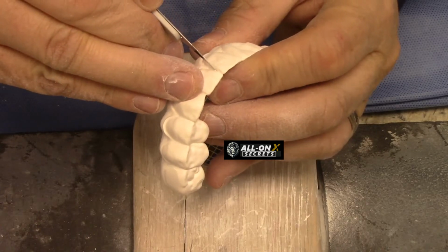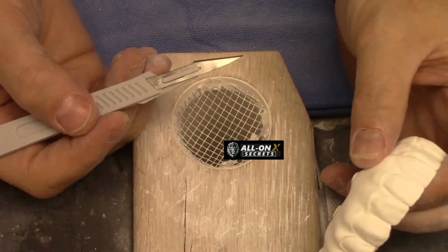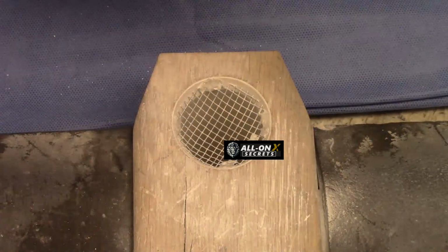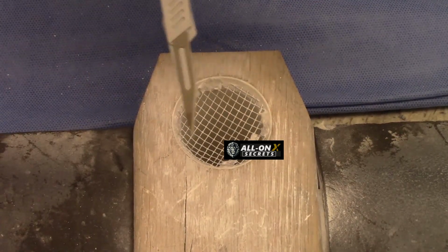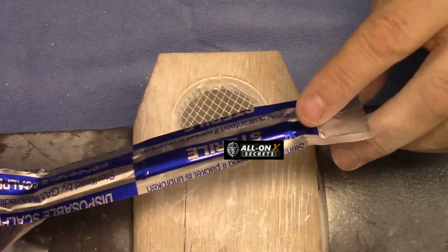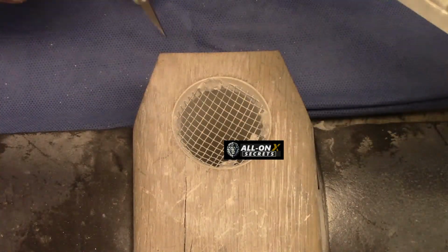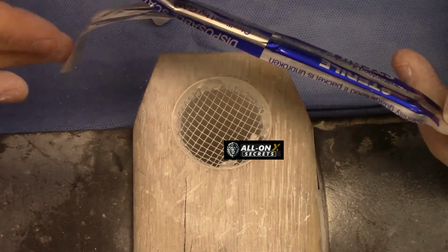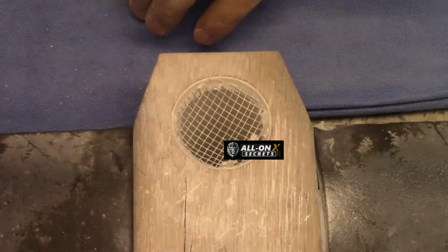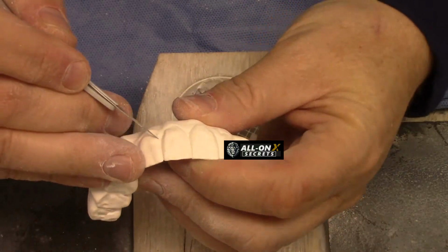I always think, like, where does something look fake? This is a 15, actually, I don't know what blade it is. Probably look here. I buy them like this. I think it would say right on here. Well, if you're interested, let me know. I'll shoot you the information on it.